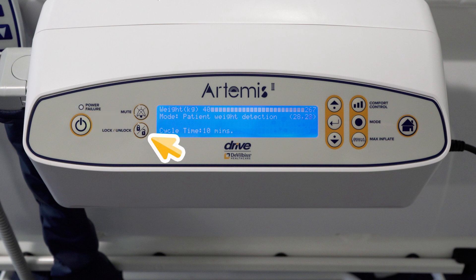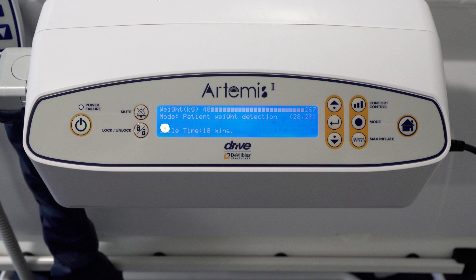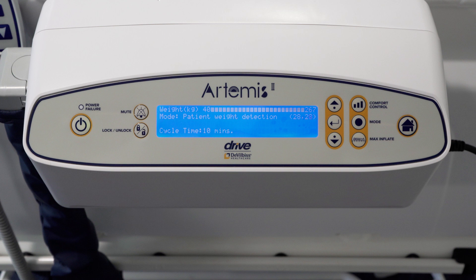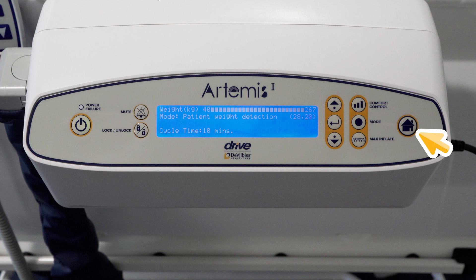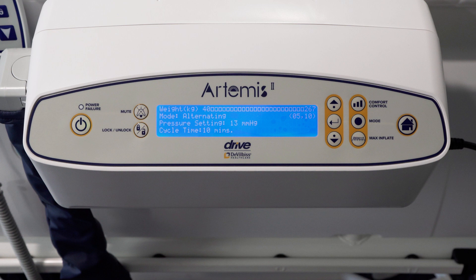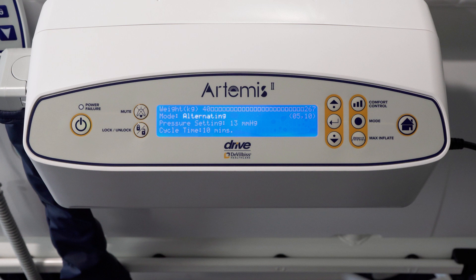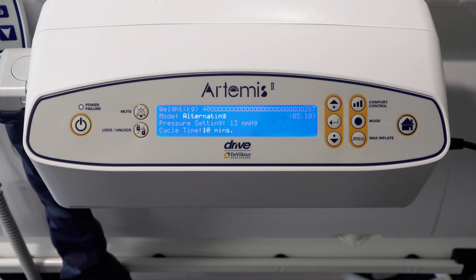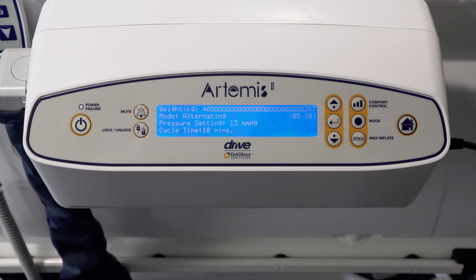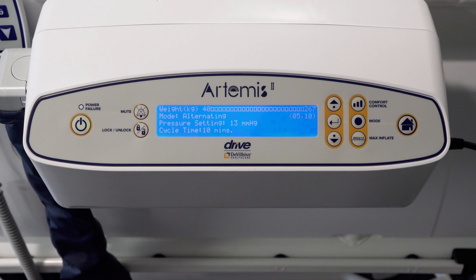Additional features include power failure illumination, lock and unlock function, and a mute alarm button which silences the audible alarm for 20 minutes. There is also the home button which returns you to the home screen. The digital screen will inform the carer of the chosen mode, the cycle time, and the internal cell pressures.